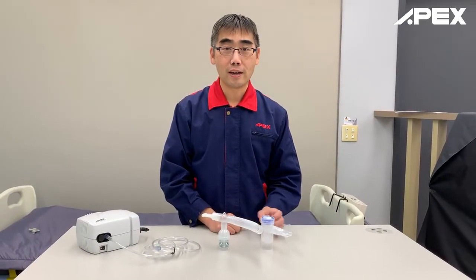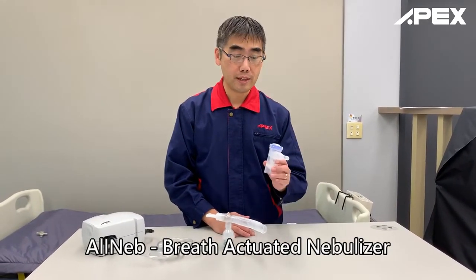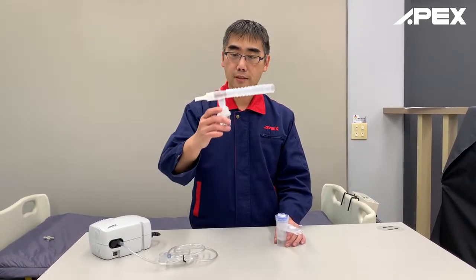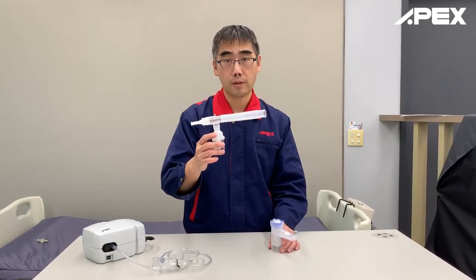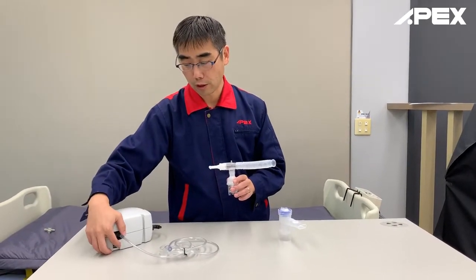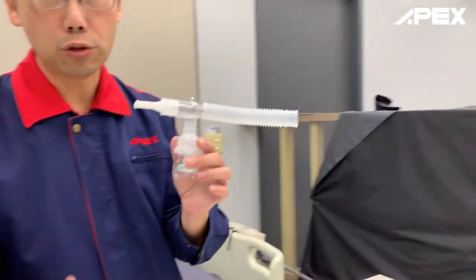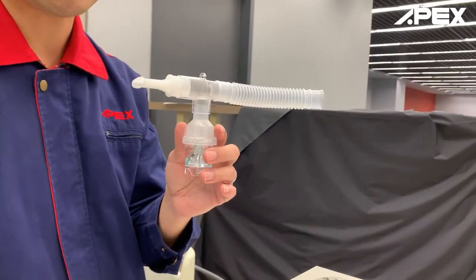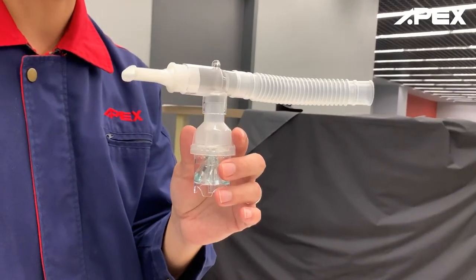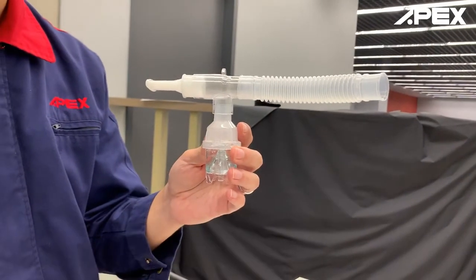Hello, my friends. Today I'd like to talk about a new nebulizer called the breath-activated nebulizer. As you can see, the conventional type is like this T-shape — this is a continuous type. I'll use an Apex compressor, and inside I've put some liquid water just to do a demonstration of the difference between the continuous type and breath-activated nebulizers. This is a very simple design for the T-shape that you'll very commonly find in the respiratory market.